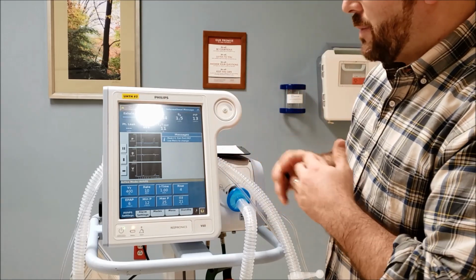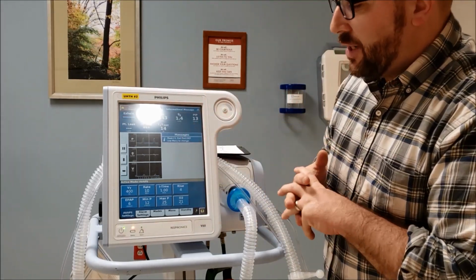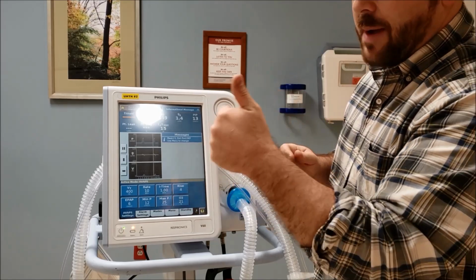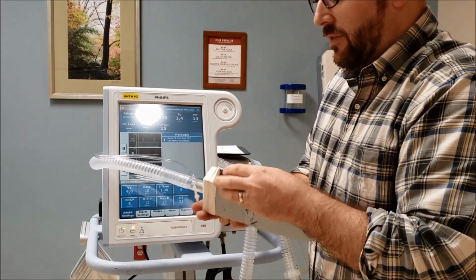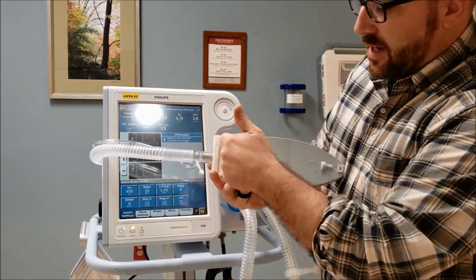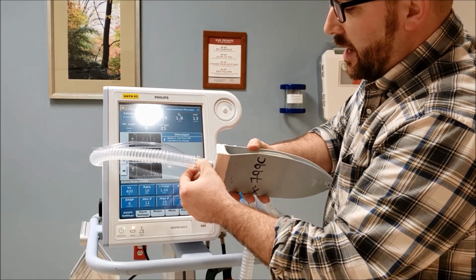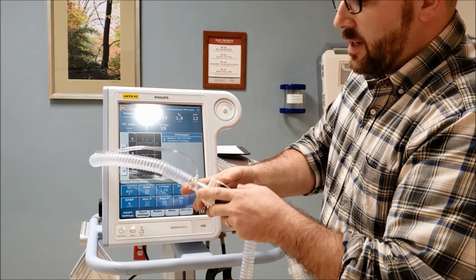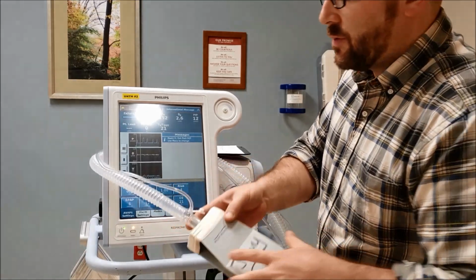So when the machine first comes up, you're going to see an informational message. Like any of these machines, you need to go into the machine and say what type of mask you're using and what type of expiratory valve you're using. In this case, this is nice RT tape job on my lung here, you see. But this is a whisper valve. So you're going to see that's where the patient is exhaling from. You don't want to occlude that if it was a real patient.